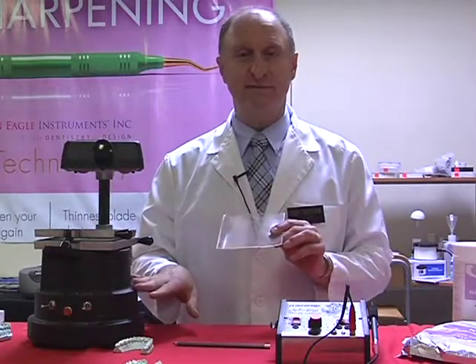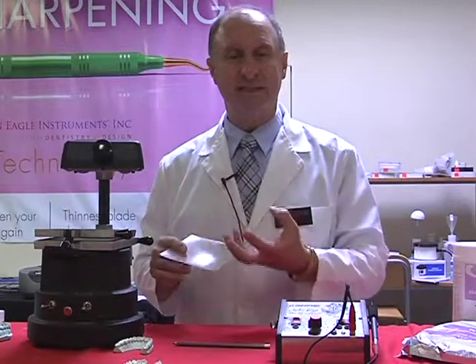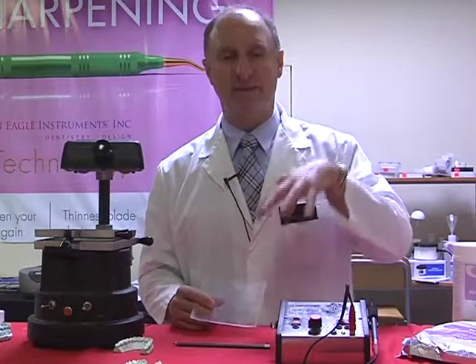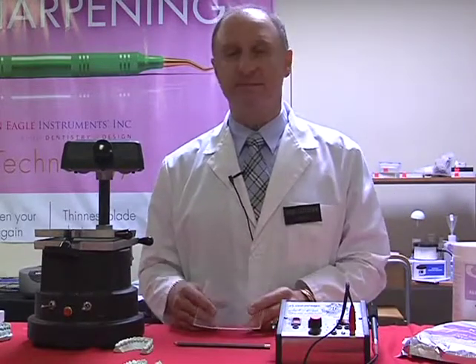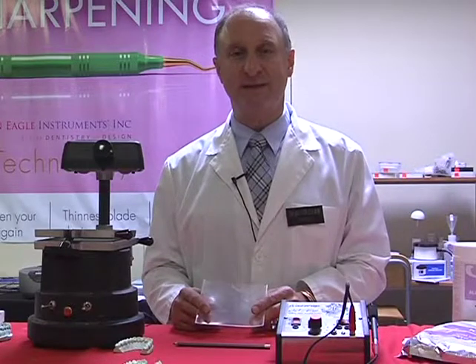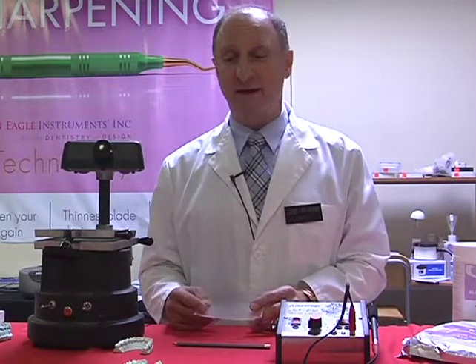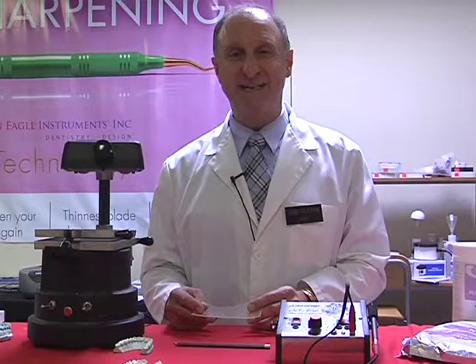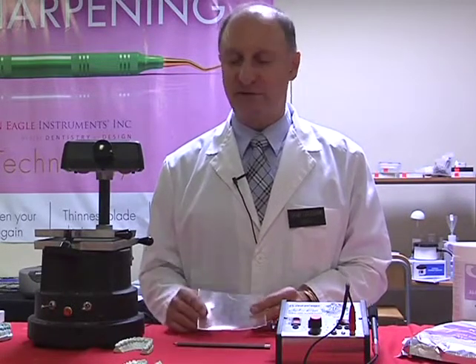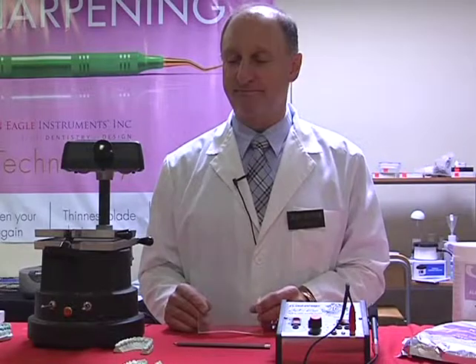And in this case, it's a vacuum former, so it actually sucks it down over the model. In other cases, they use pressure forming, where they push it down. So there is a variety of systems out there that are used in pressure forming. Drufomat is one of the different products that are out there. And in this case, I'm using a product from the Keystone industry.